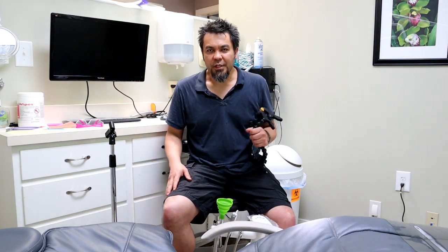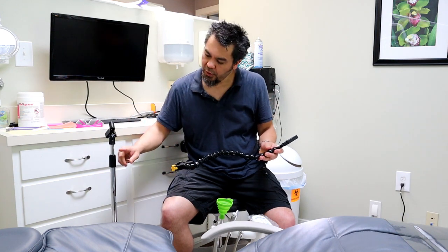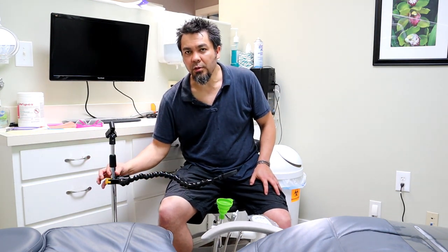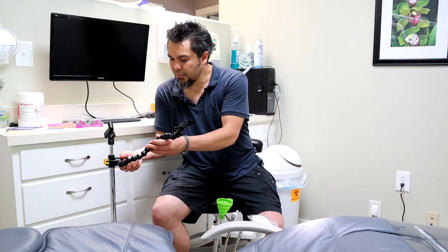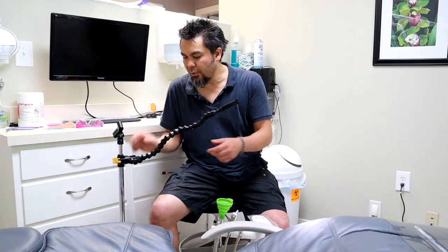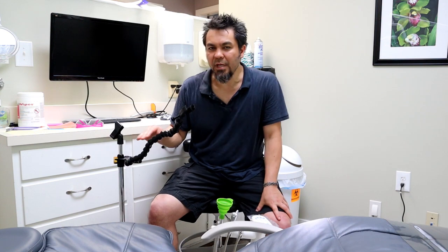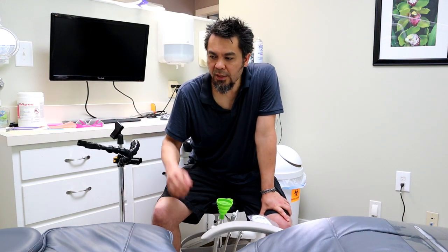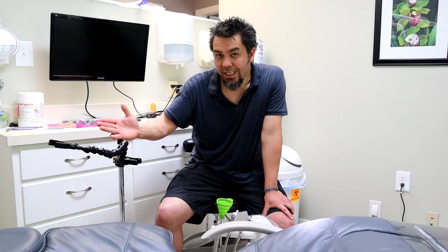When you get your microphone stand, you're going to screw the microphone clip on the top. Then you're going to clamp your PLAMP to one of three places. You can clamp to the large diameter main tube of the microphone stand and twist the PLAMP back and forth. You can also clip to the little collet nut on the stand — if it's loose, you can pivot the PLAMP, which is nice because you can swing the evacuation tube out of the way and bring it back in.